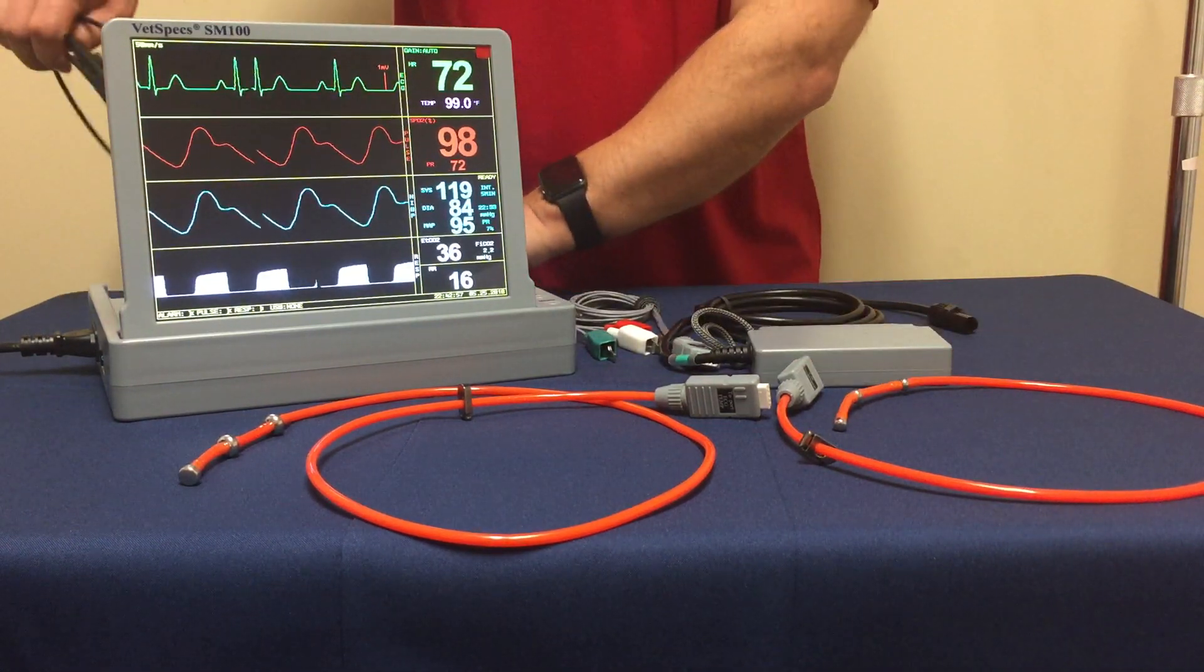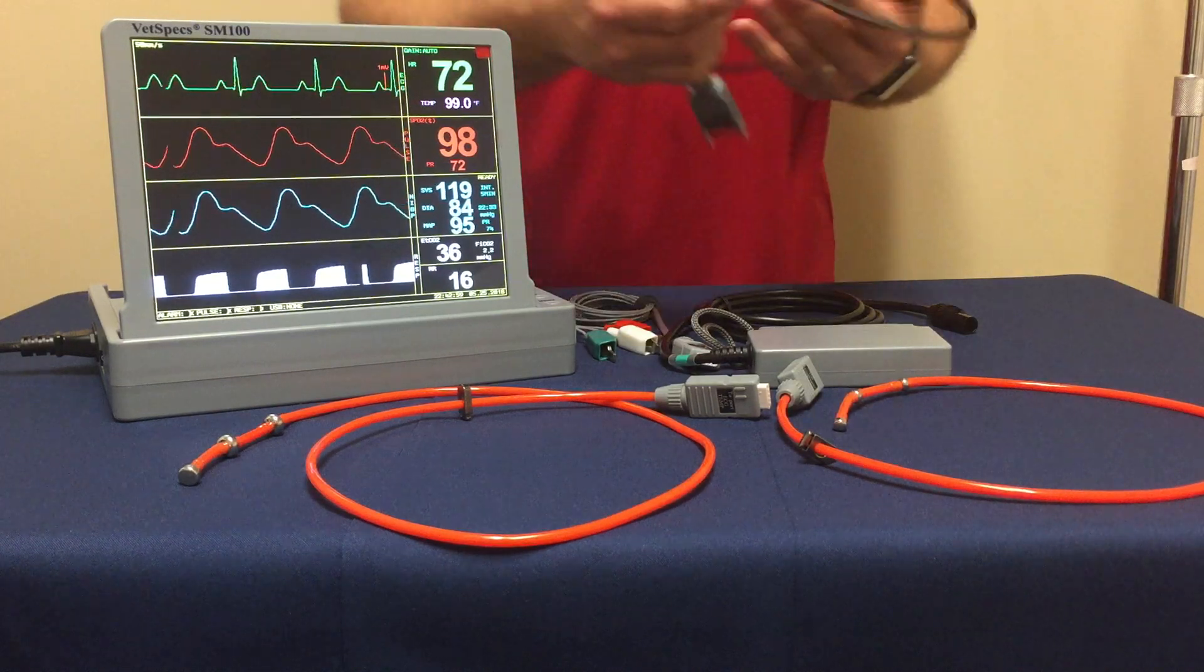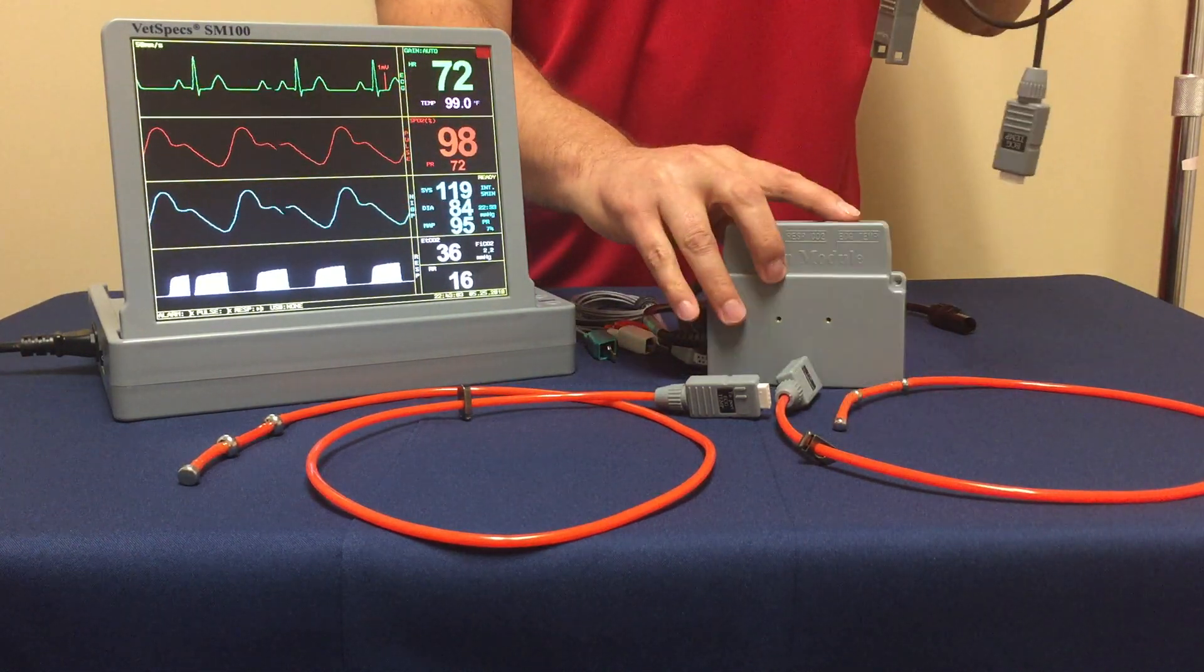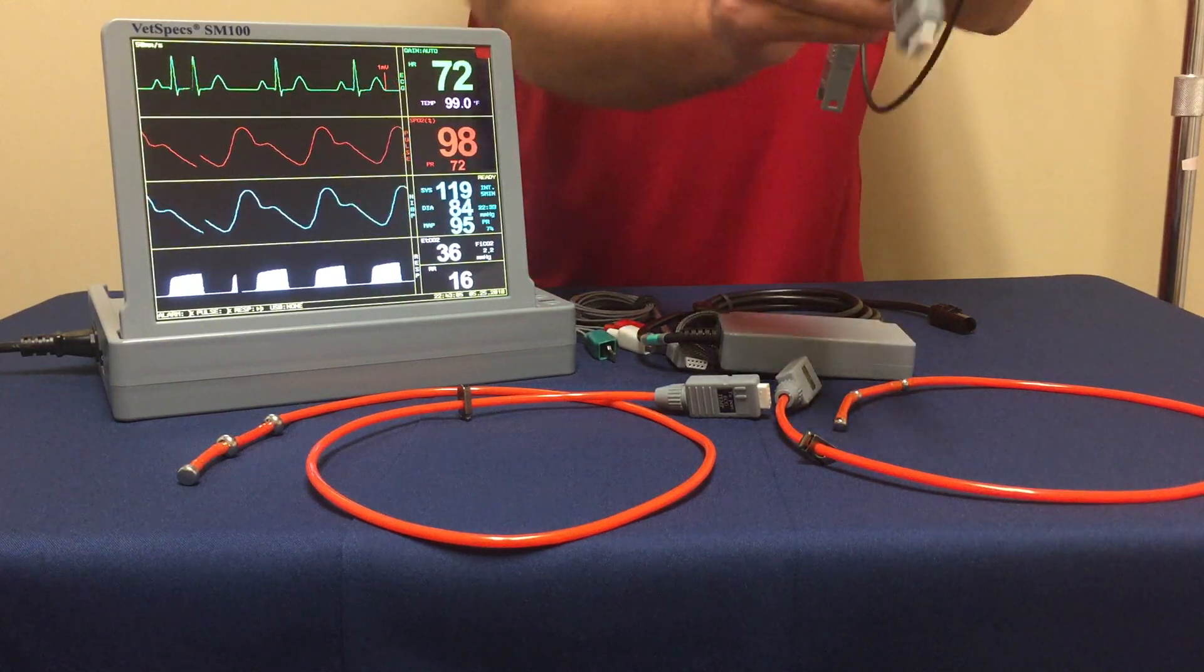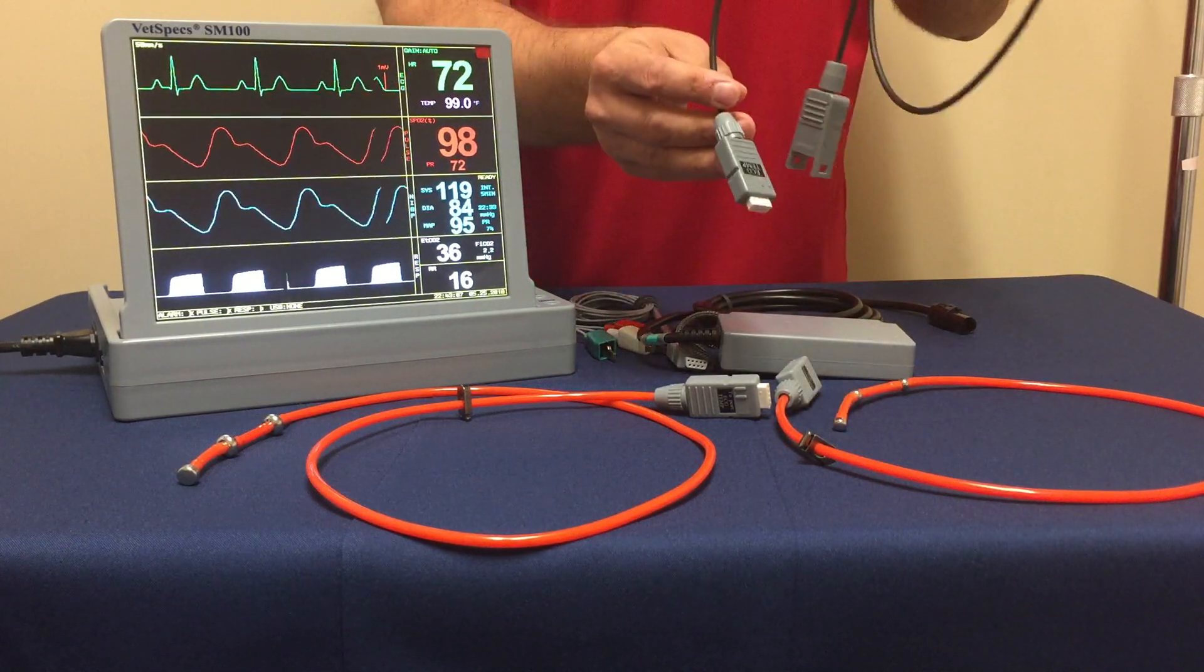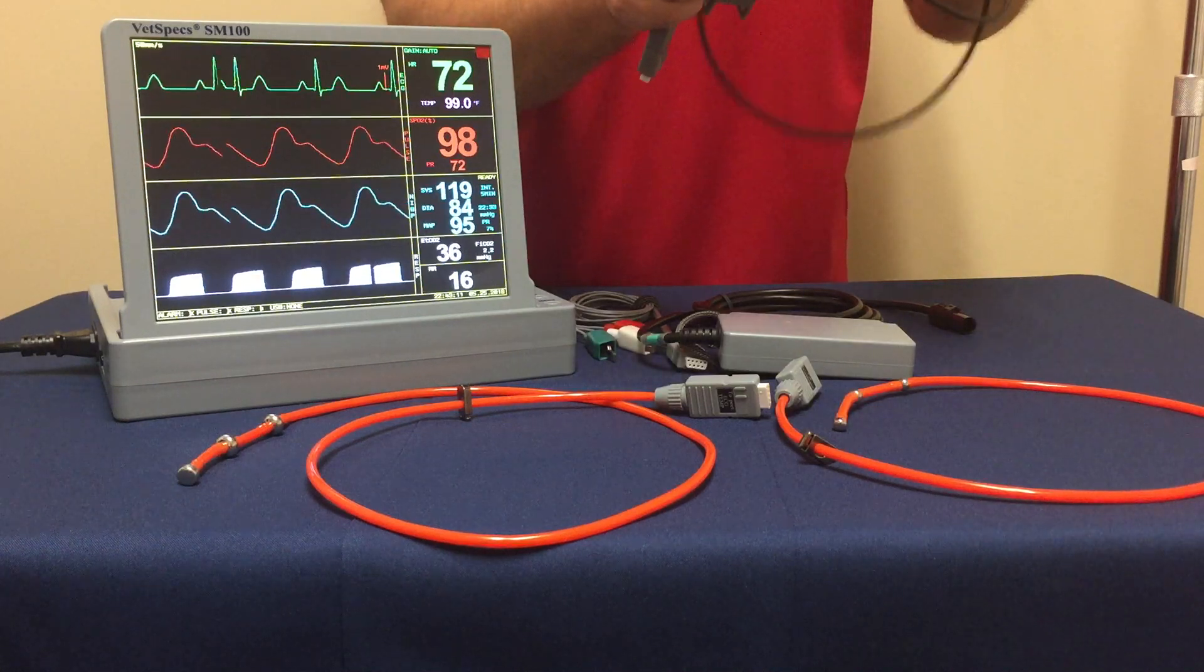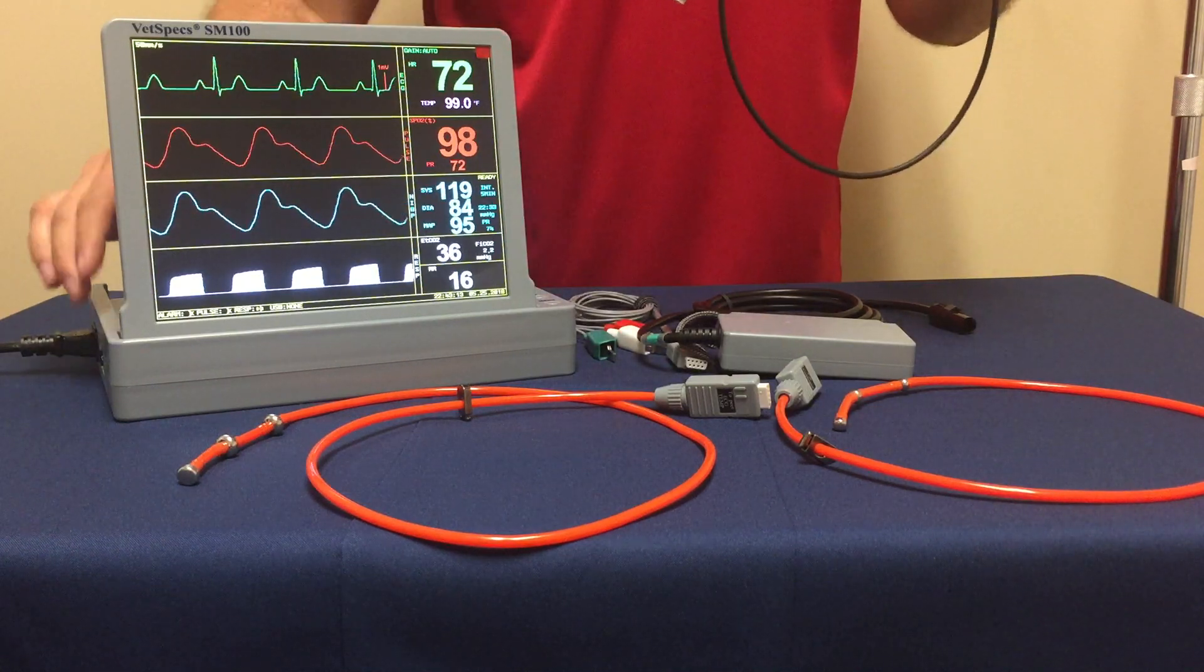VetSpecs does include an extension cable. This cable is about three feet in length. That allows you to connect to your port to give you additional length if necessary. We appreciate you joining us and viewing our video and we'll talk to you again later.